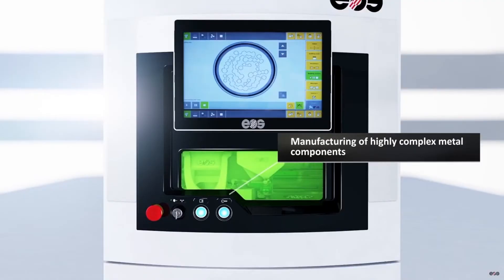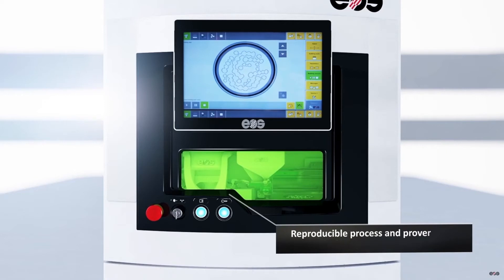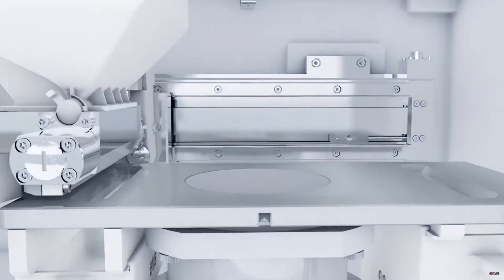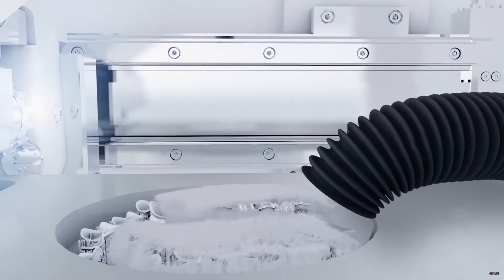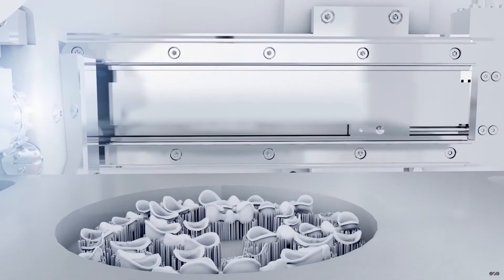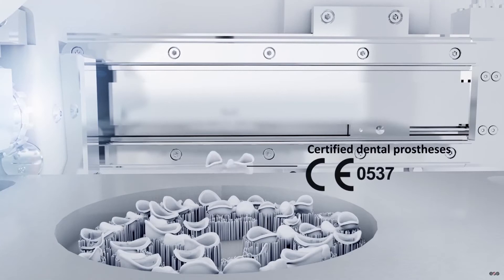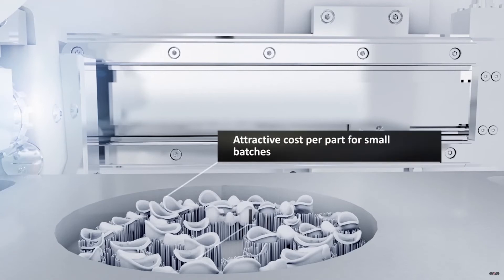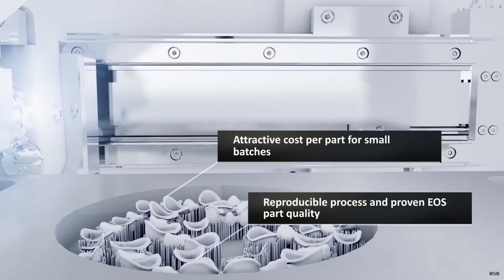After the part has cooled for a short while, the metal alloy remaining in the hopper is collected and reused. The last steps for the process include post-processing and finish. DMLS parts can be treated like most other metal processing procedures — the material can be heat treated, further milled, or surface finished. Building an object layer by layer allows an efficient and cost-effective method for producing small, intricate geometries, both internally and externally. This simply is not possible with subtractive processing such as milling, or formative processing such as casting or molding.